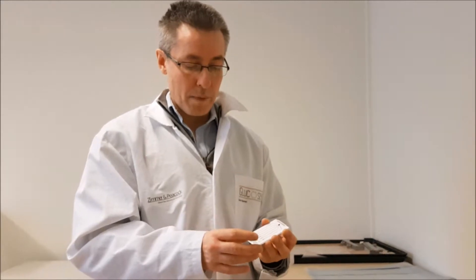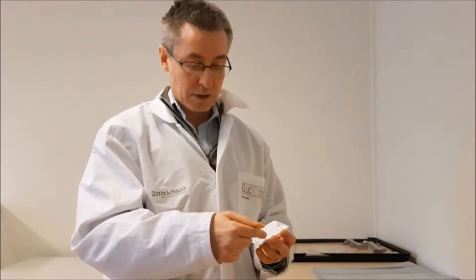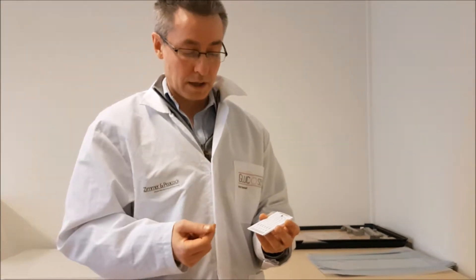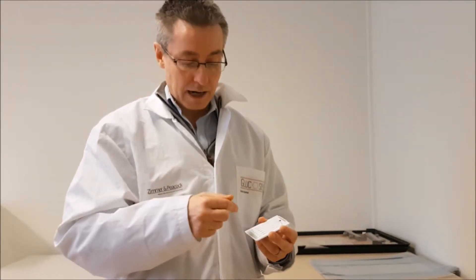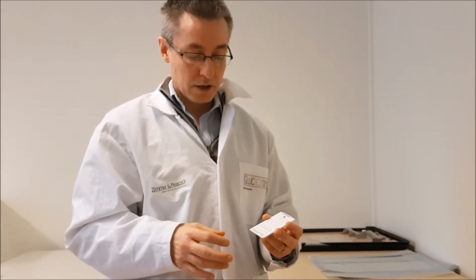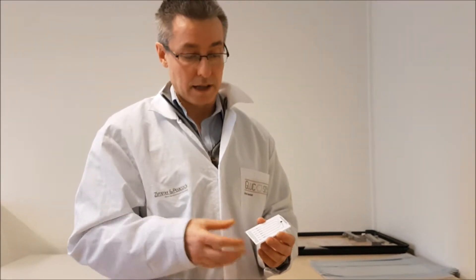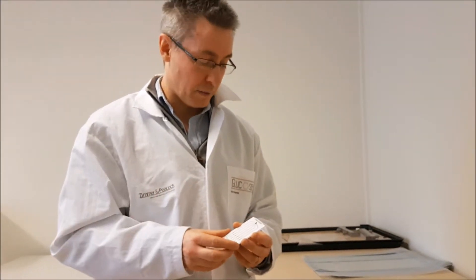We've repurposed it for medical diagnostics. We have ZP electrochemical sensors under here, and we could with you do something like have lactate and oxygen and potassium and other analytes. So one drop of blood, parallel channels, individual detection of analytes in the blood or in plasma or serum or maybe in an environmental sample.